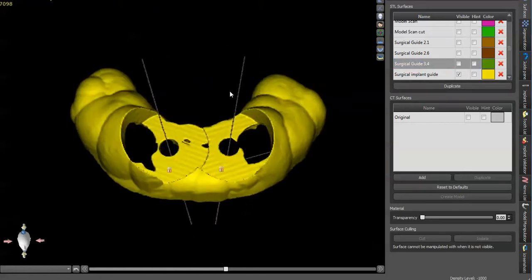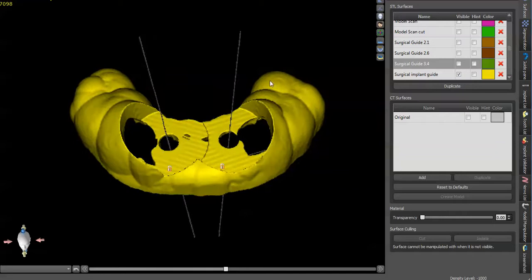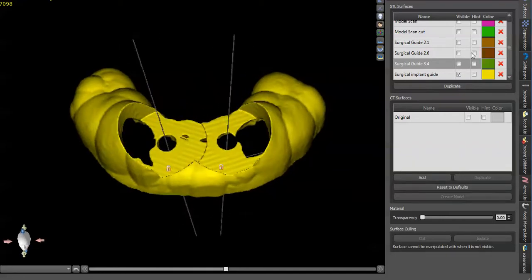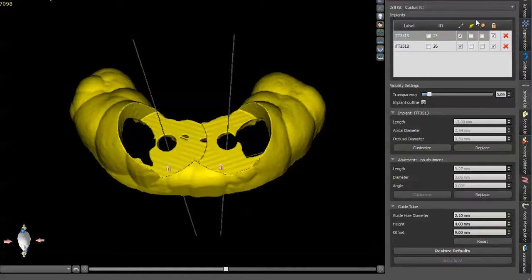Sequential drill guides for each drill and you can even make an implant surgical guide. There's a way to do this a little bit differently than what I've shown in past videos. And this is all by using a custom kit in implant list.